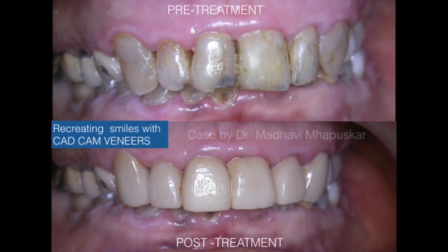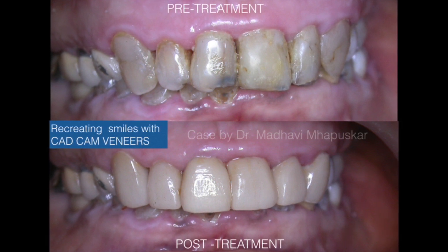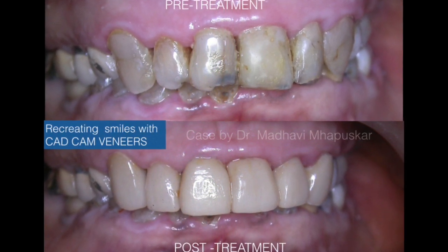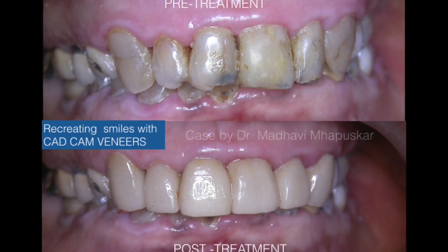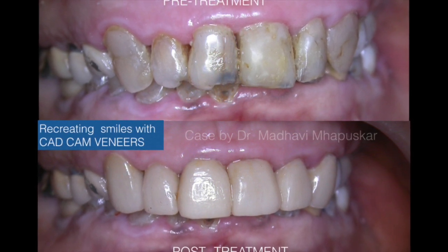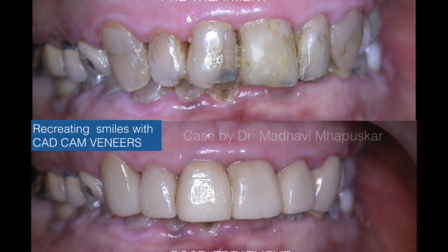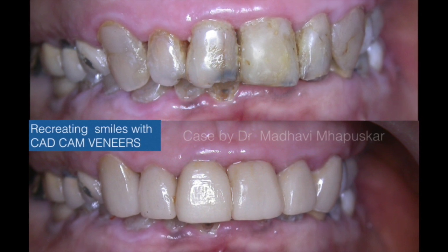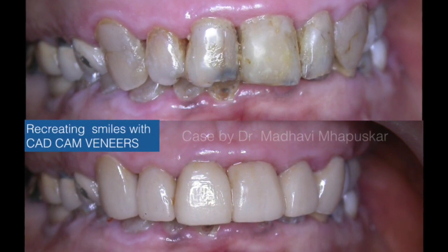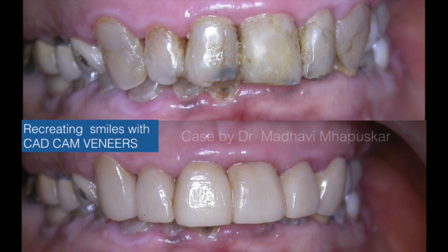In the second case, you can see a complete smile makeover done with the help of ceramic veneers. Our digital workflow enables us to provide restorations which are more time-saving, cost-effective, and accurate for our patients.